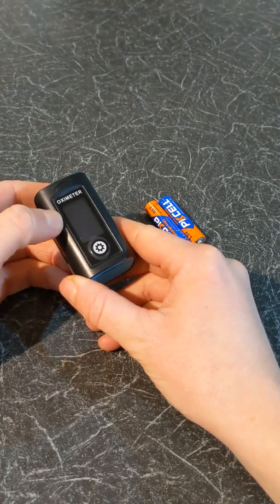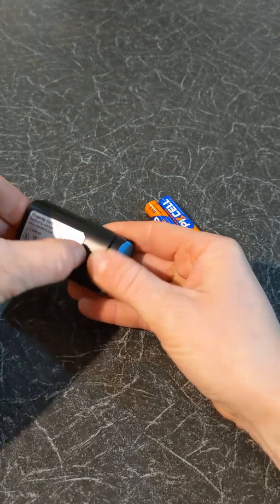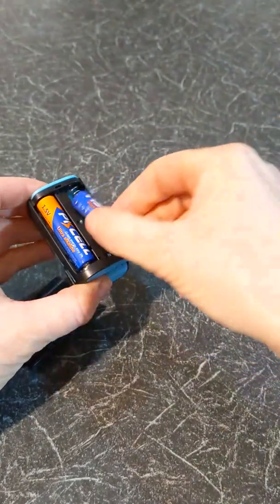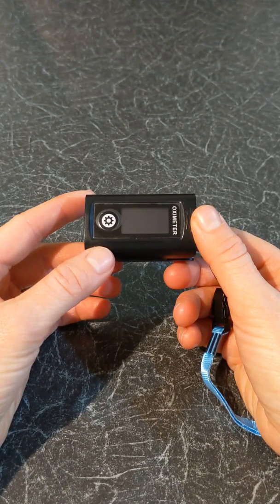Now let me show you how it works. First, to insert the batteries, remove the back cover of the oximeter and put the batteries in. Before starting a reading, it is important to note that as per the manufacturer guide, no responsibility is assumed by them or us for the use of the oximeter, and always consult your doctor for any medical advice.